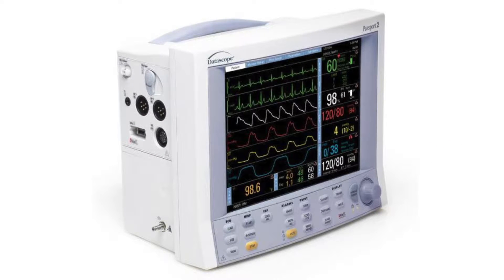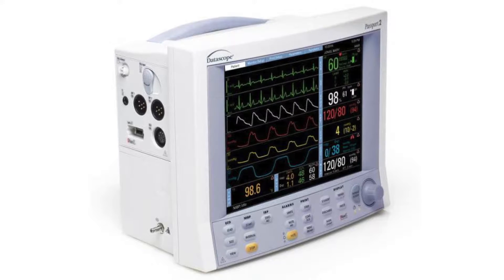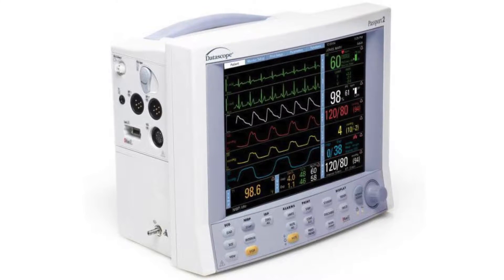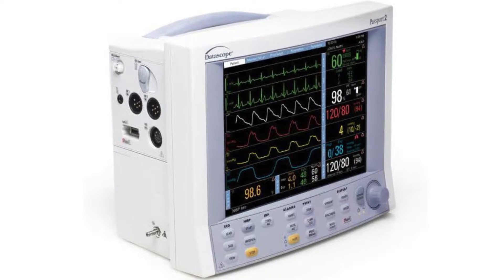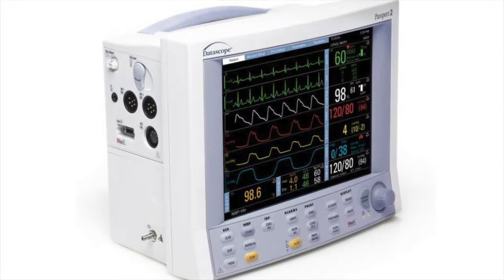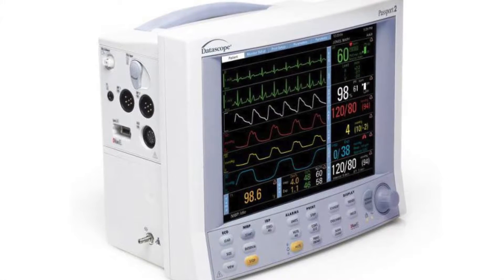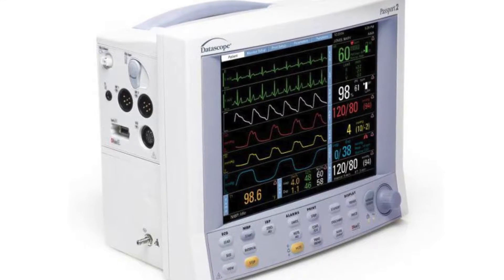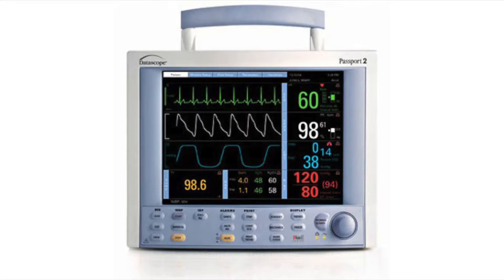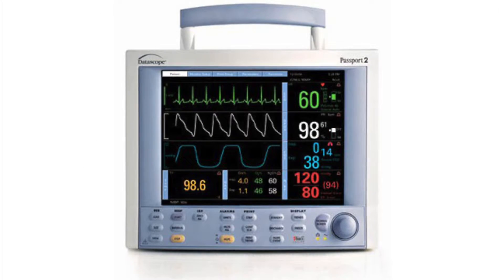The Datascope Passport 2 features an incredibly intelligent display interface which allows the user to evaluate patient status. Data is presented clearly, concisely, and logically. Waveforms are aligned to digital data for immediate interpretation.